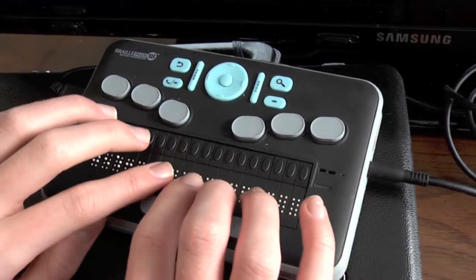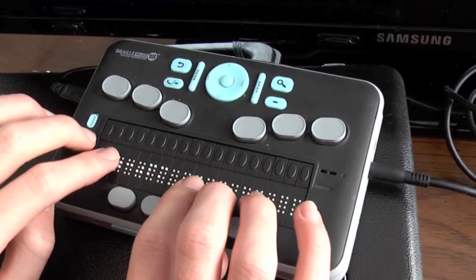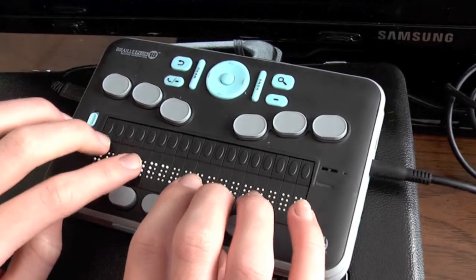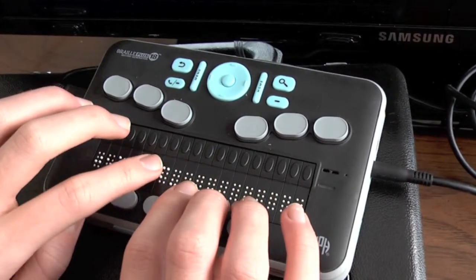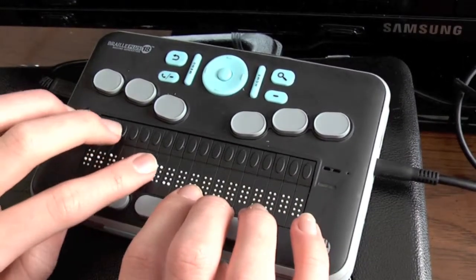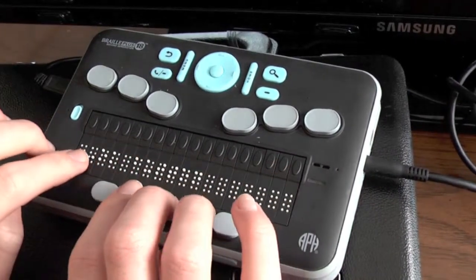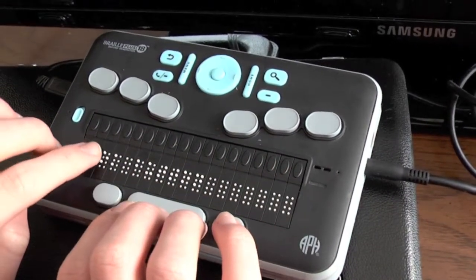PM. And obviously if it was AM, you would just type AM, but there should be no spaces. Just 2 digits for the hour, colon, 2 digits for the minute, and then either AM or PM all written together. So now on the Braille display we see 5:30 p.m. and if I down arrow again, OK button. There is the OK button, which will save the current date and time.